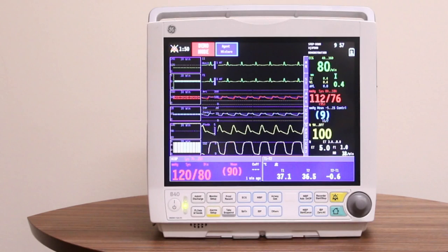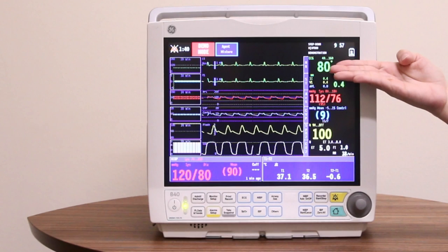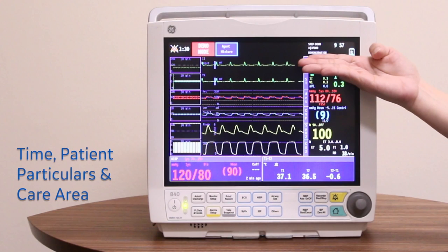As we navigate through the main screen of the B40, you will see the alarm message field on the upper left-hand corner, which shows information or alarm messages. On the upper right-hand corner, you see the battery indicator, which tells you how many batteries are actually inside the monitor, as well as the time, the patient particulars, and the care area.